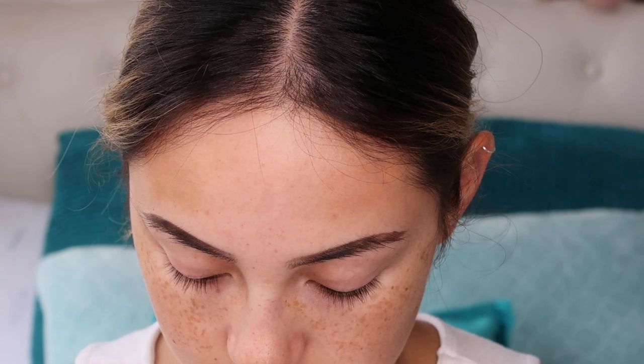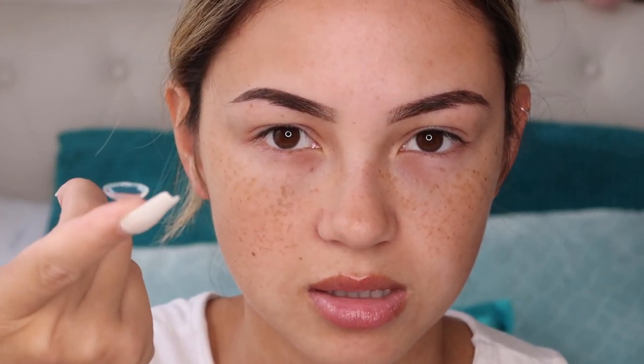Let's get started. I've zoomed in a bit. I don't have a mirror here so I'm going to be looking into the screen up here — can't really see because I don't have my contacts in. I'm going to start off with the left eye. I just use these one-day contacts. Obviously make sure your hands are clean.